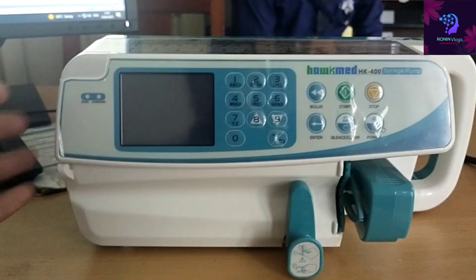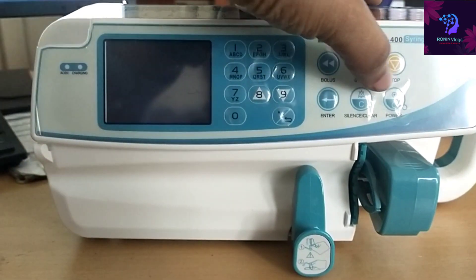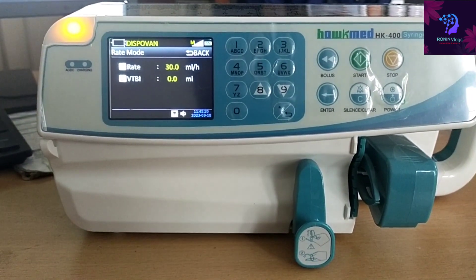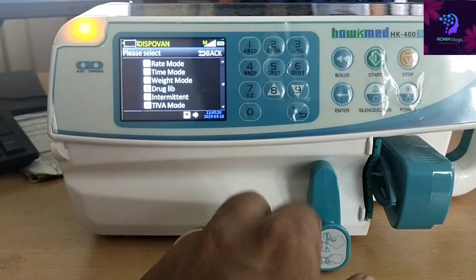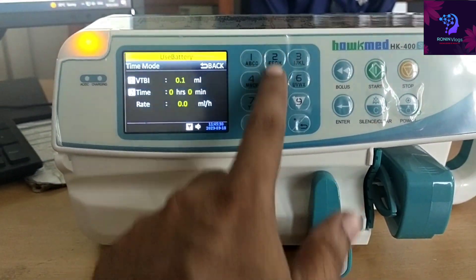There are navigation buttons and all buttons on the front. The machine also has battery backup. Just press and long press to switch on. At the beginning it will come to a default mode — we need to change to the right mode. Just press the back button and the different modes will appear.